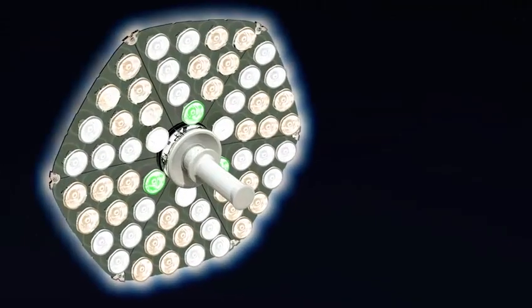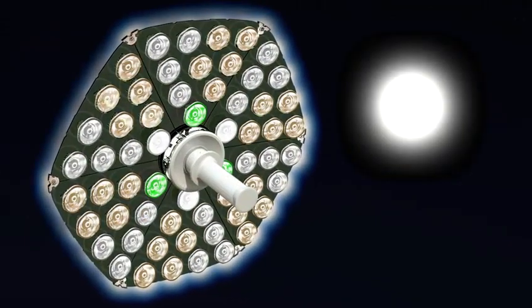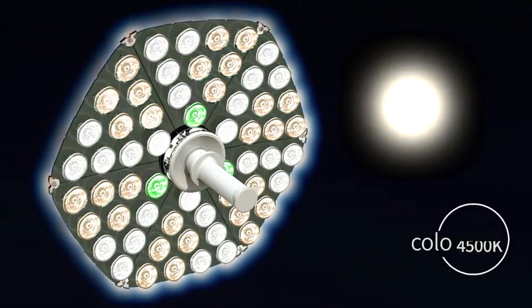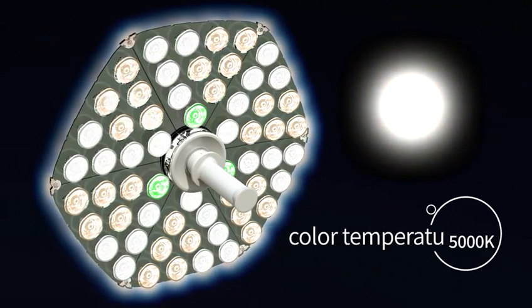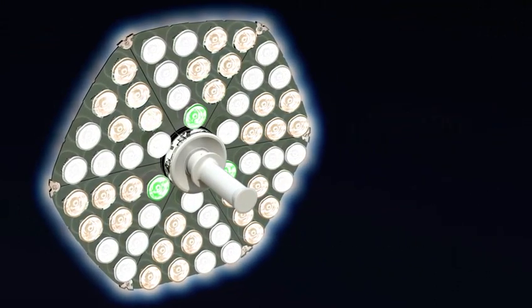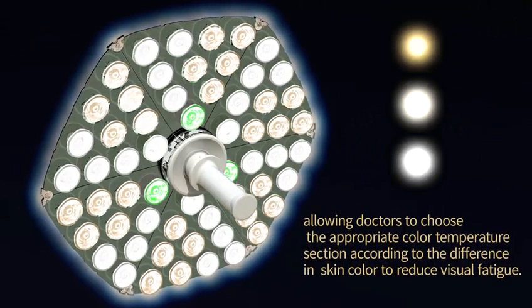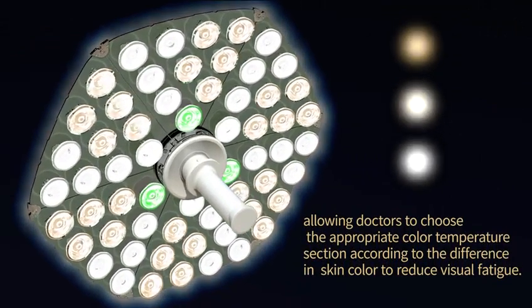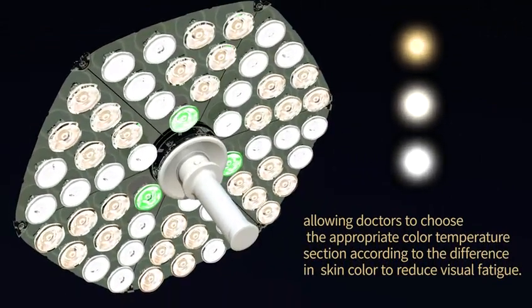It has 3 adjustable color temperature sections of 3800K, 4500K, and 5000K, allowing doctors to choose the appropriate color temperature according to differences in skin color to reduce visual fatigue.